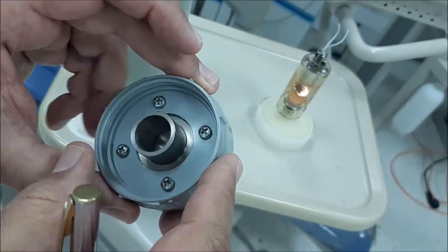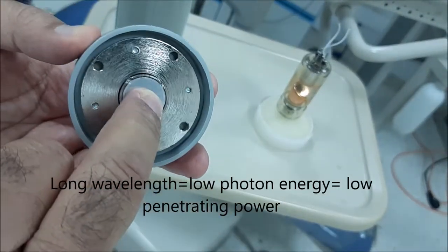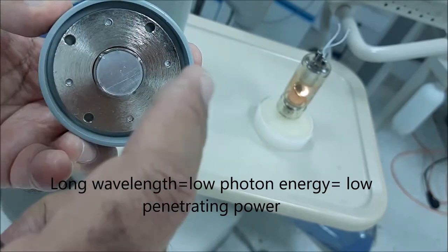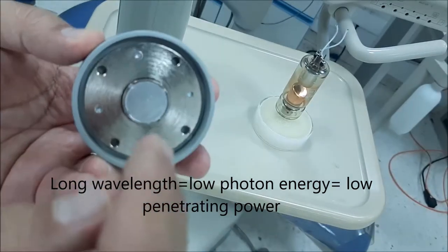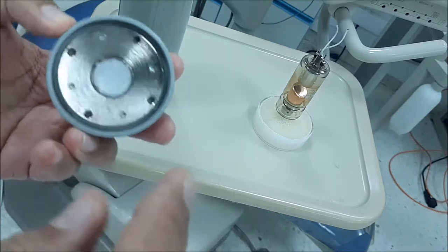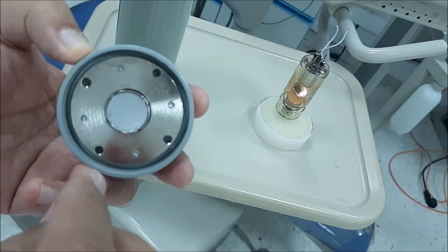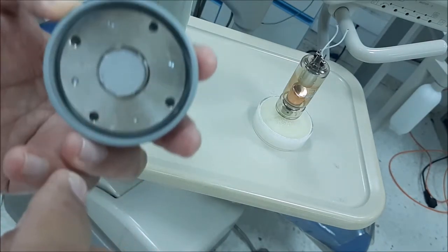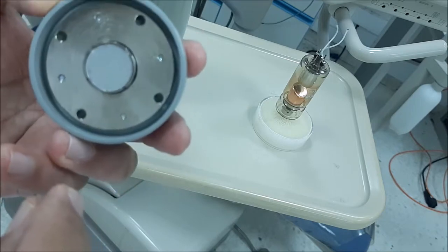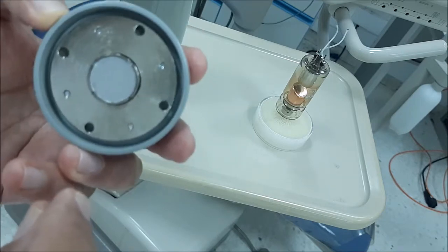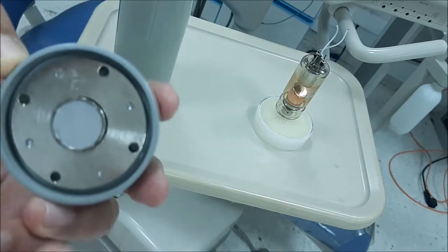The action of this filter is to absorb all the long wavelength x-ray photons, meaning those photons that have low energy or low penetrating ability.